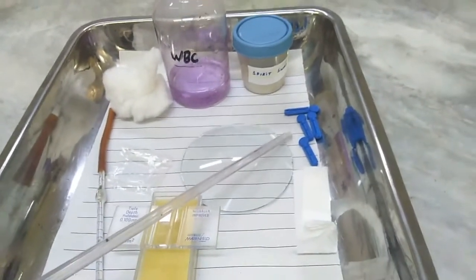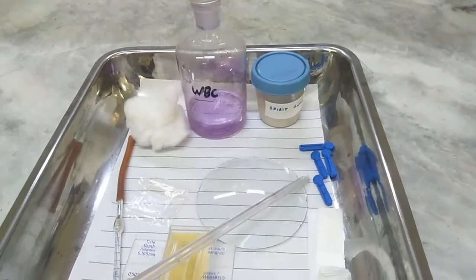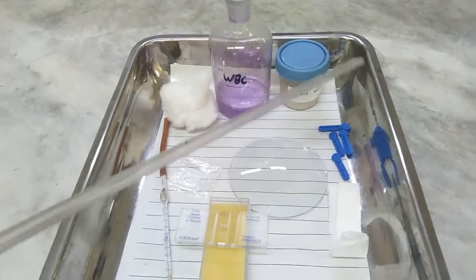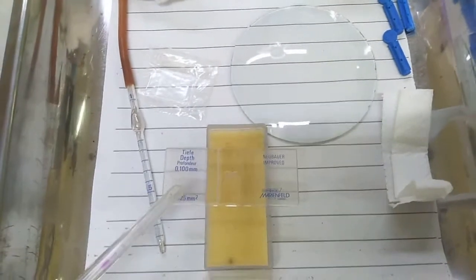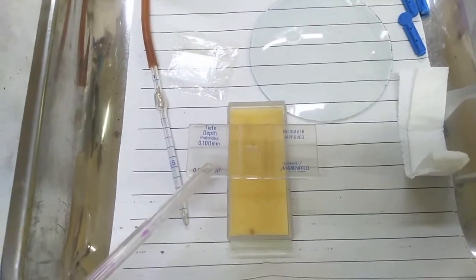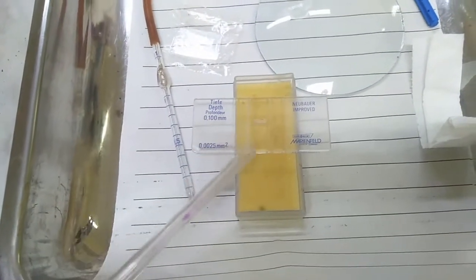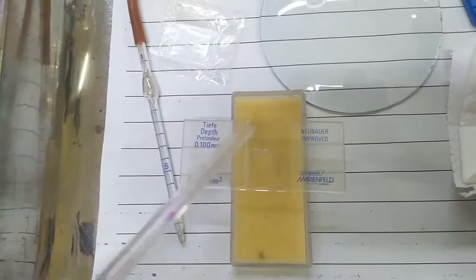Make sure that the pricking needle you are using is sterile and covered. The next thing used for the WBC count is the hemocytometer, which has three parts. The first part is the Neubauer chamber. Right here you can see the central area of the Neubauer chamber, which will be charged later and we will do the counting under the microscope in this central area.